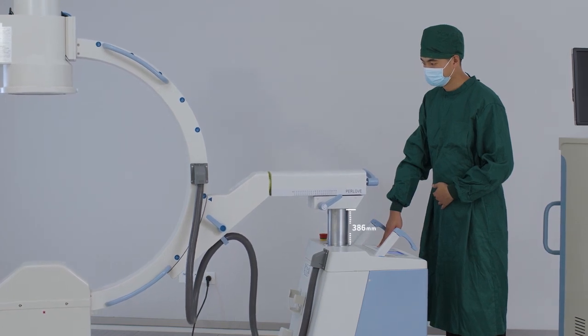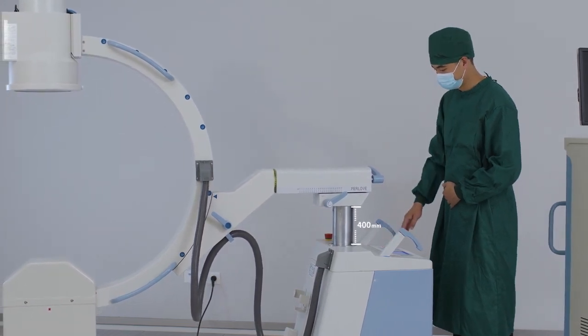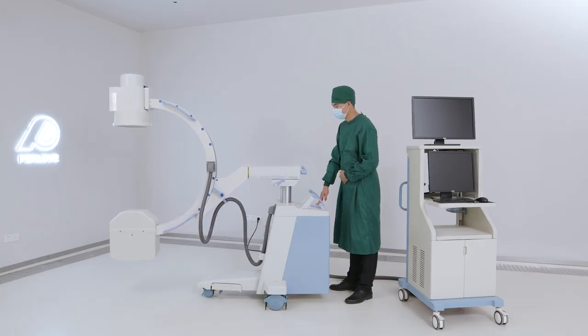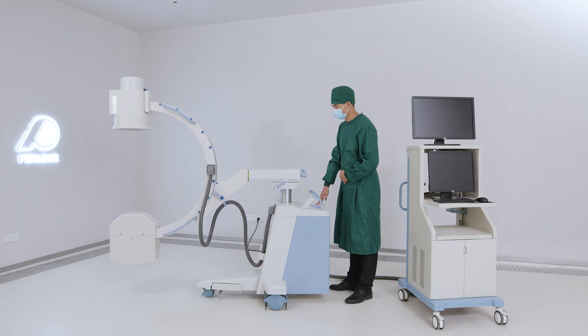The compact, flexible mechanical movement design can meet different medical needs and provide a comfortable control experience for doctors.